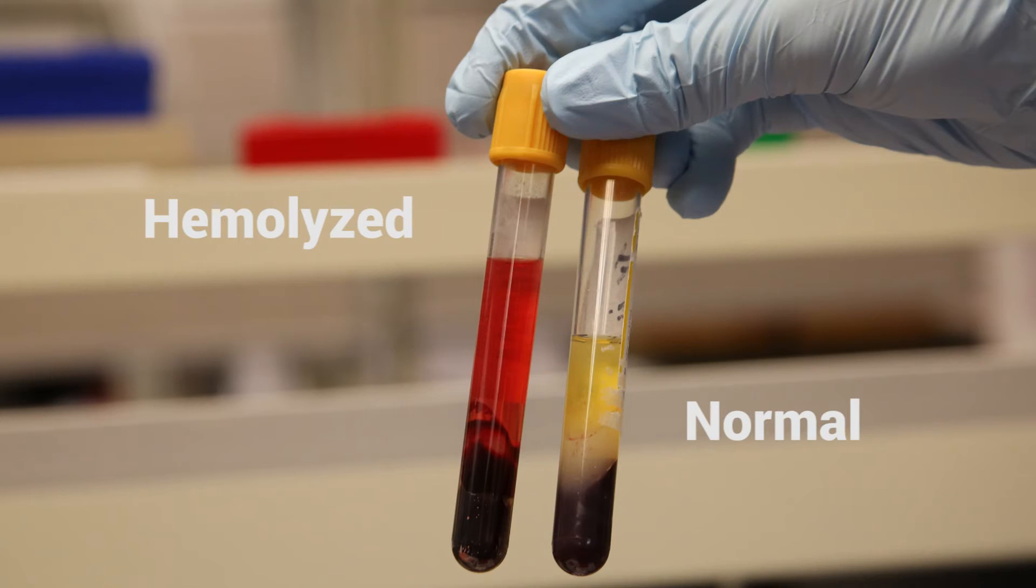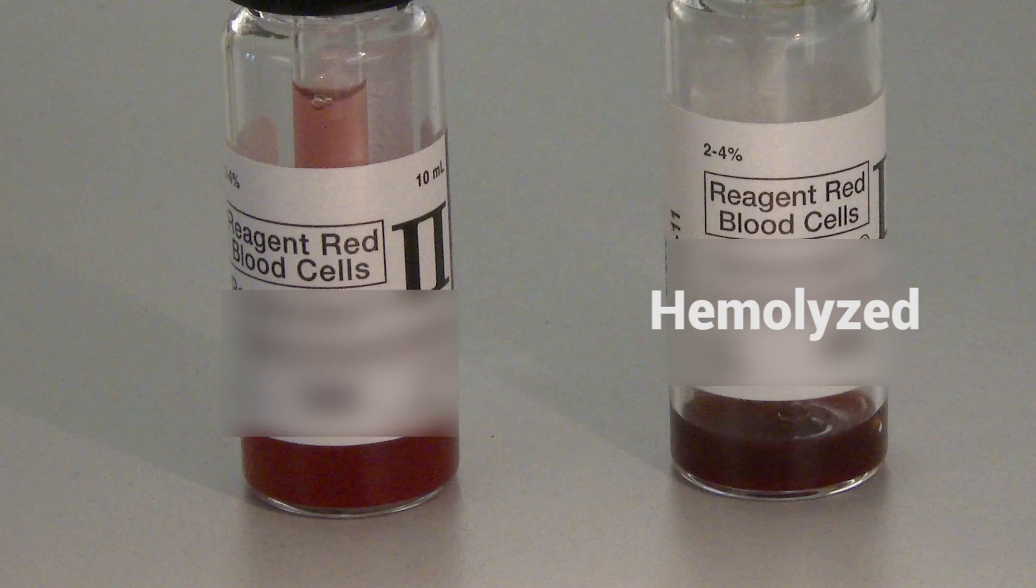When in vitro hemolysis is seen, it's important to check that the pretest serum or plasma is not hemolyzed or if any vials of reagent red blood cells are being used in the test, that they are not hemolyzed.